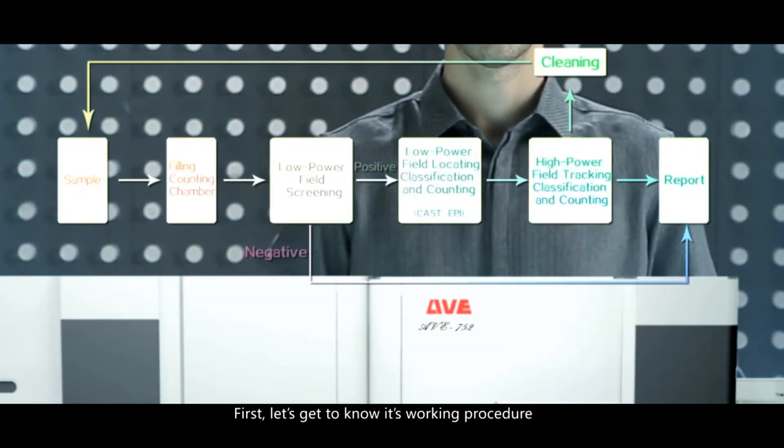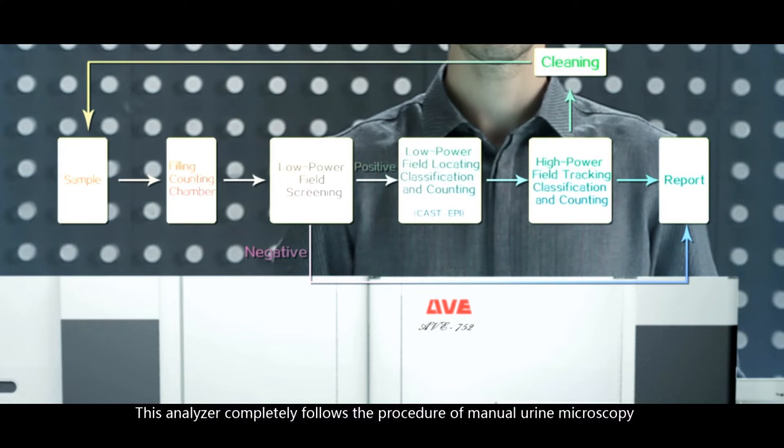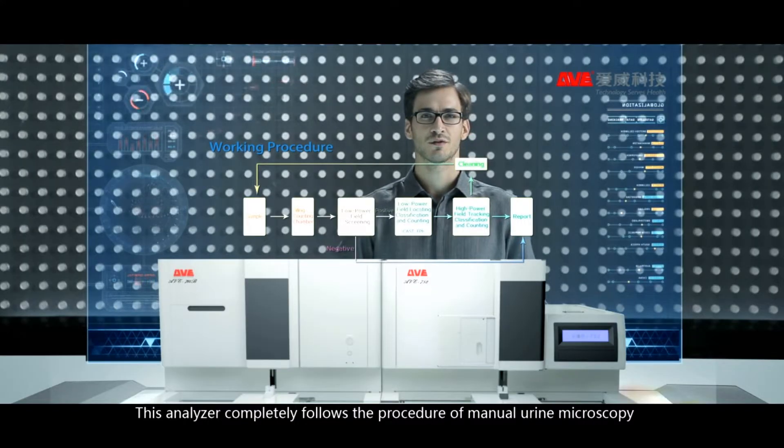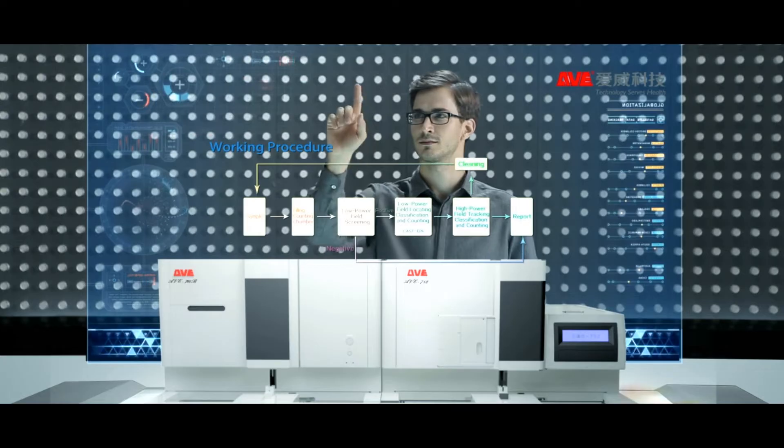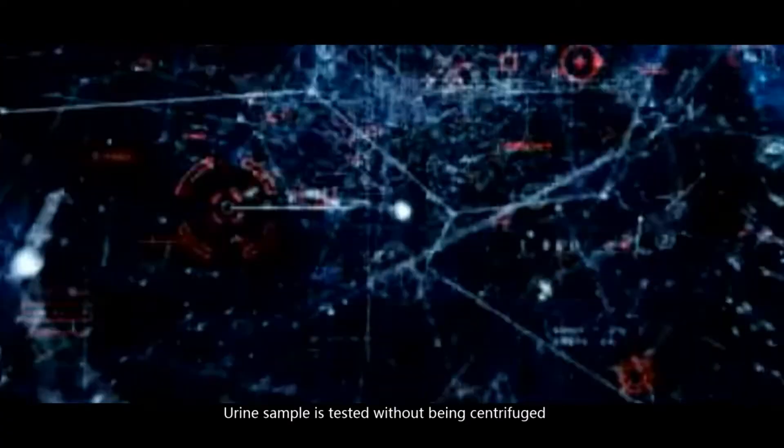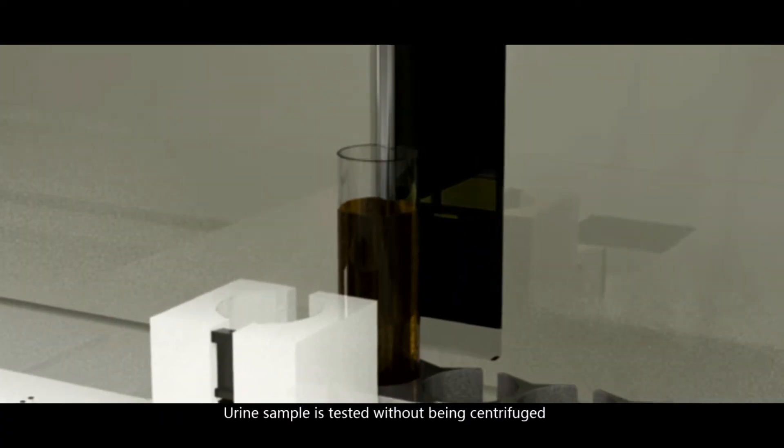First, let's get to know its working procedure. This analyzer completely follows the procedure of manual urine microscopy. Urine sample is tested without being centrifuged.